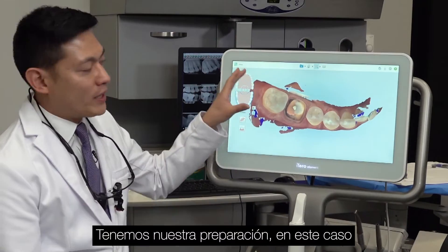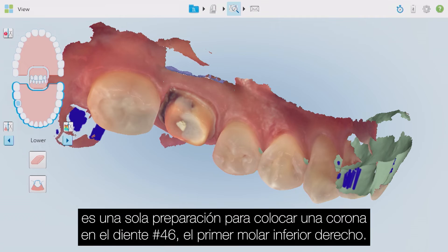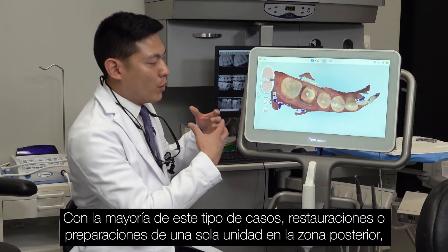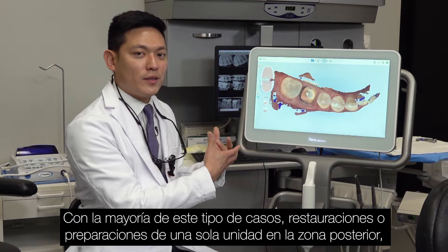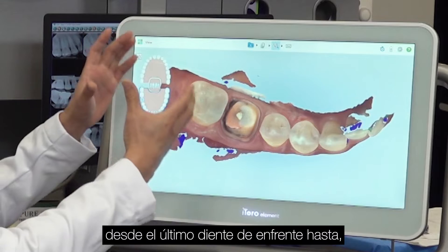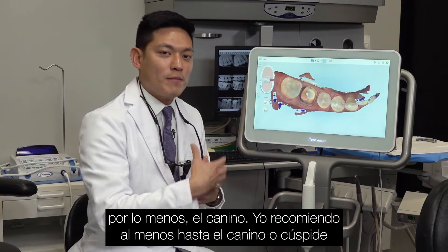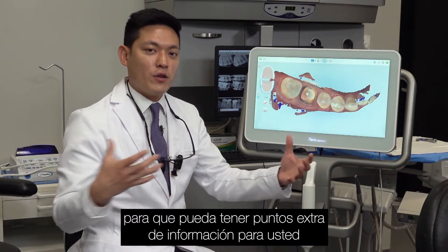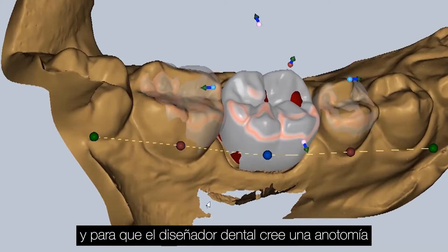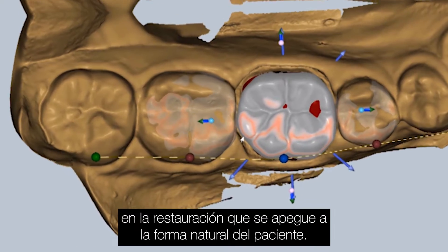So we have our preparation — in this case, a single unit crown prep on tooth number 30, the lower right first molar. You can see it here in the entire quadrant. Starting off with the entire model, with most of these types of cases — single unit posterior restorations or preparations — we want to scan from the last tooth forward to at least the canine. I recommend at least to the canine or cuspid so that you have extra data points for yourself and the dental designer to create anatomy within the restoration that is true to form for that patient.